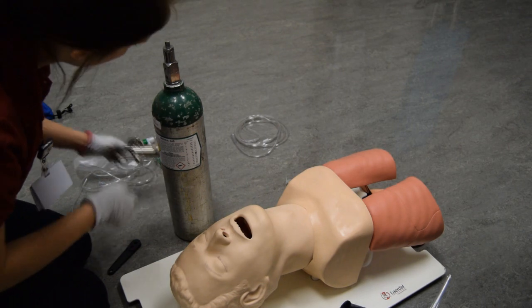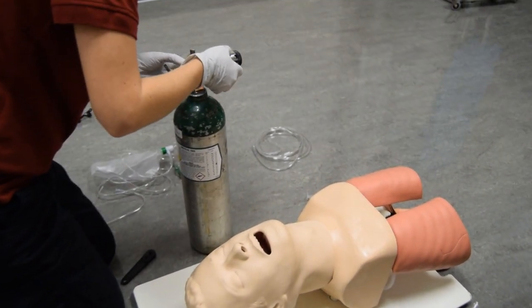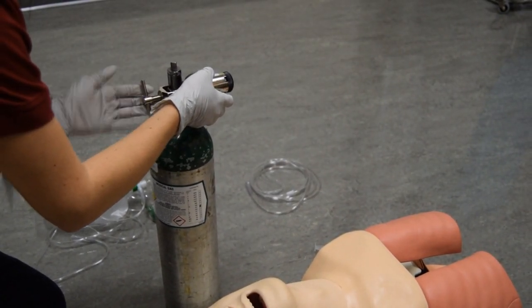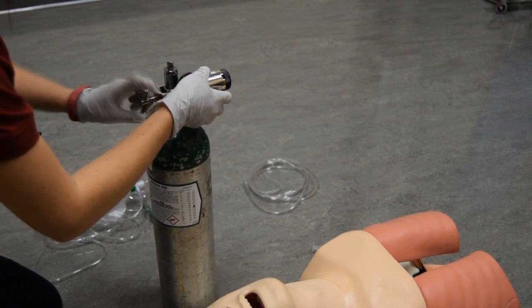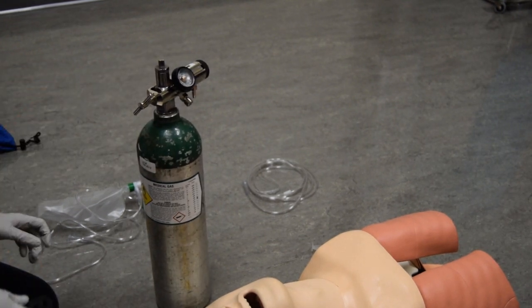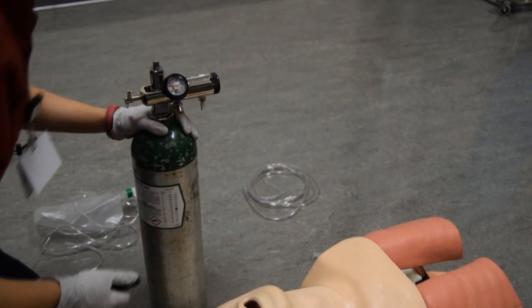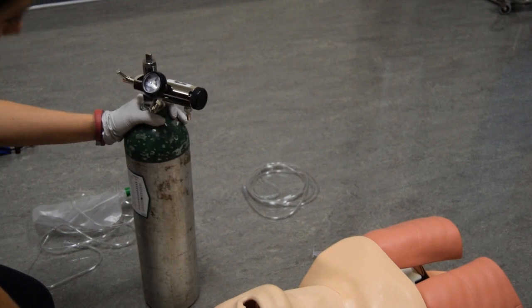Assembles the regulator to the oxygen tank. Opens the oxygen tank valve. Checks oxygen tank pressure. Checks for leaks.